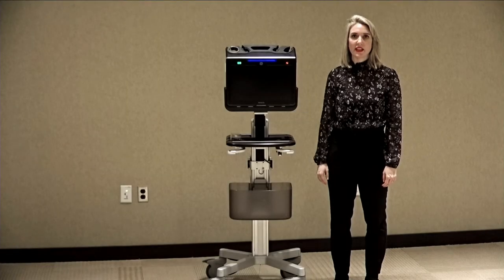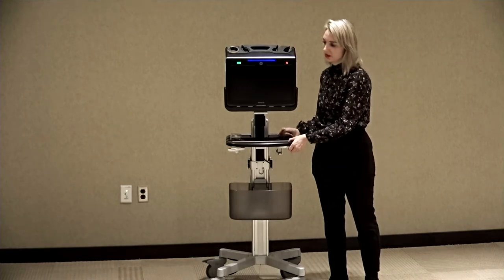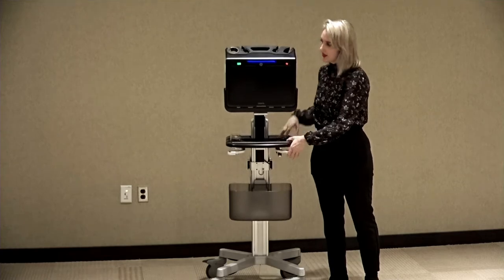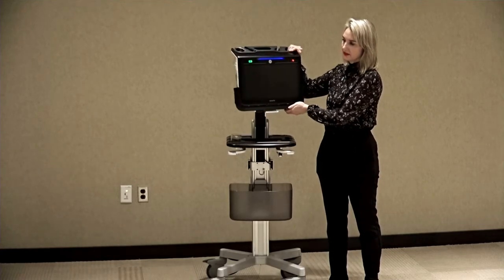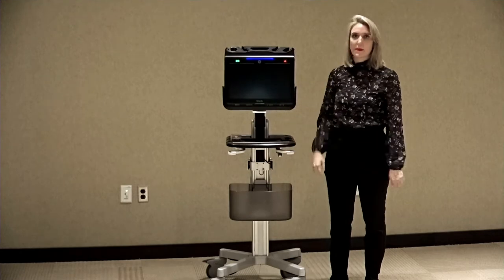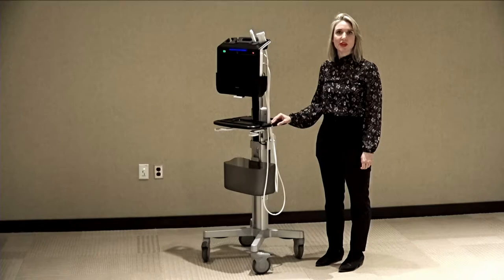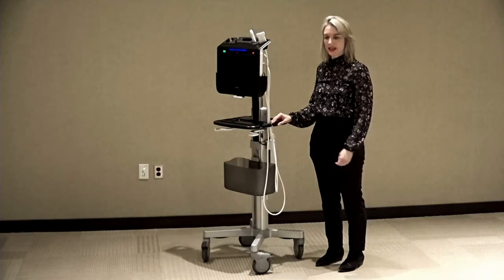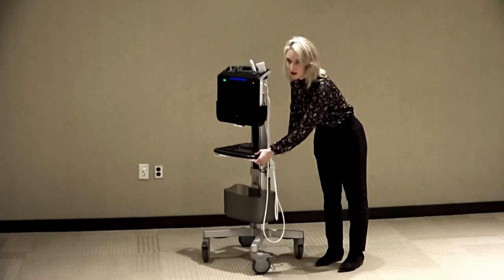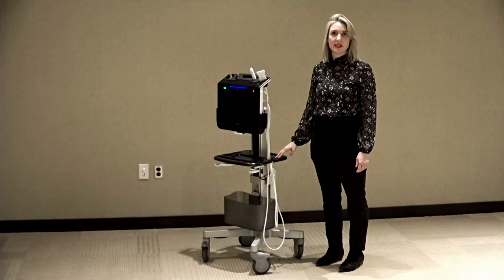For portability and ease of use, the Venue Go cart can be moved up and down. The monitor can be tilted and swiveled side to side. Probes are located at the top of the system, so the cables never touch the ground, even when the system is at its lowest height. This keeps the probes and cords secure and clean.